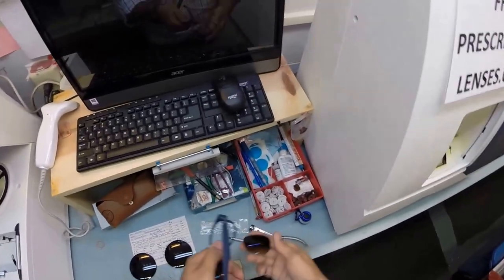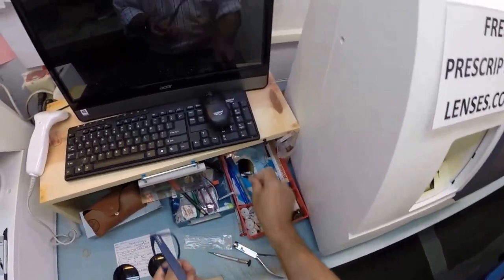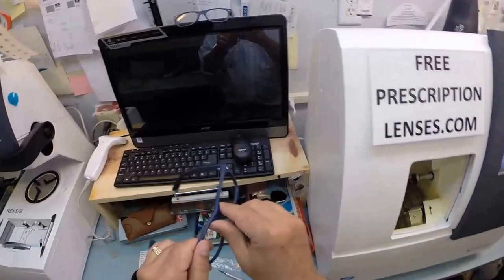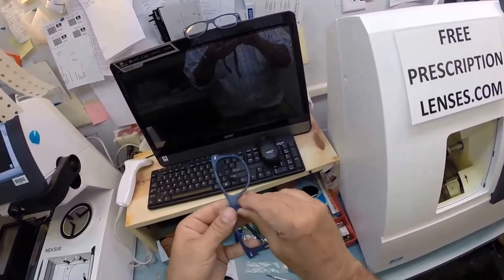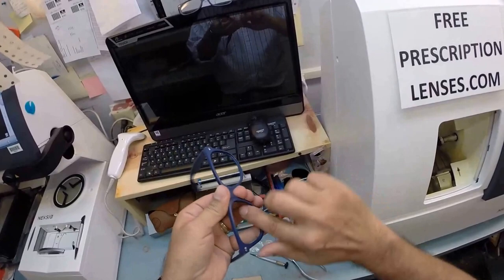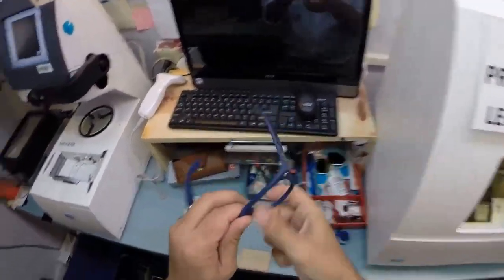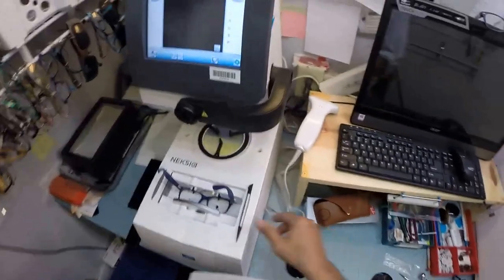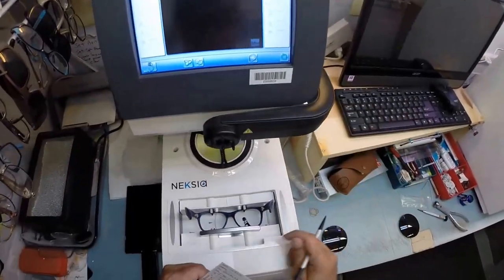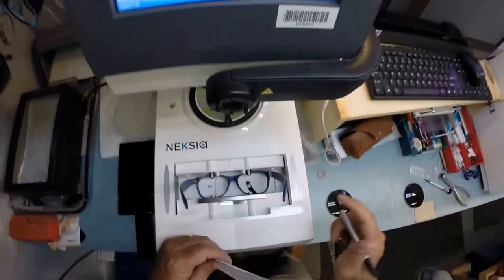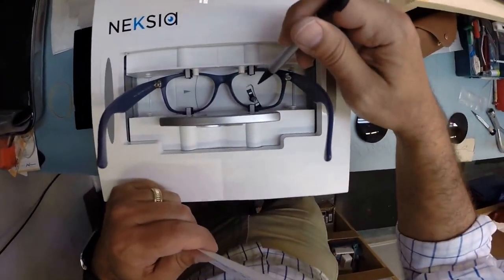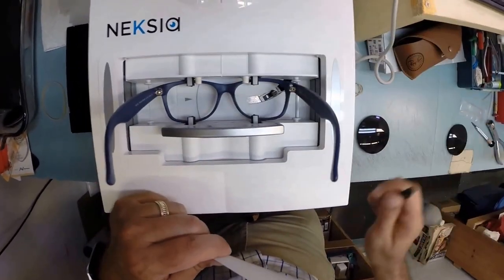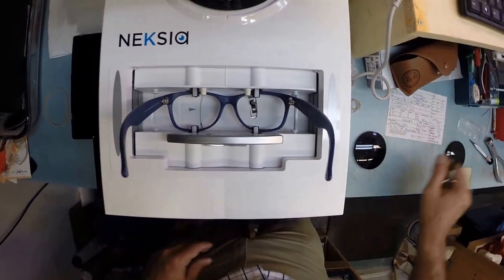I'm going to take out the original heavy glass lenses. Let me take these out and set these aside, and I'm going to clean out the residue that comes in the frame, a little bit of adhesive, get everything cleaned up there. And I'm going to put your frame into the tracing element of my edger and hit trace. Now a little stylus is going to pop up and it's going to go around and trace the shape of the right lens before moving over and doing the same thing for the left lens.